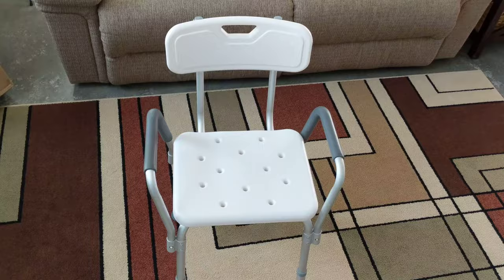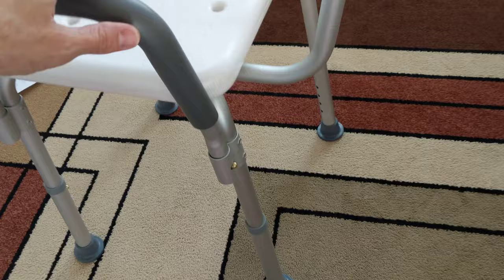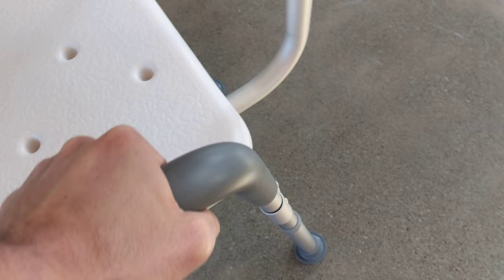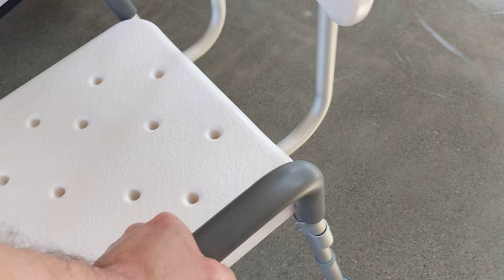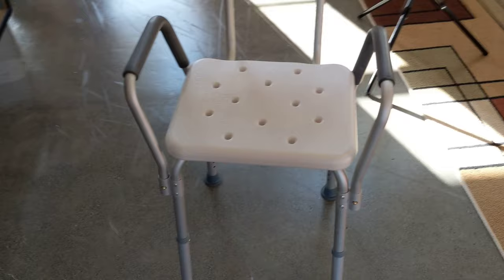And the back is good. Let's go ahead and pause this just a second, take it off the tripod, and get a little zoom-in action. So there it is — the arms can come out real easy, just push that and pop it out. The height is adjustable here. It's got nice suction cup legs on there. I have a cement floor here, so that's pretty sturdy actually.